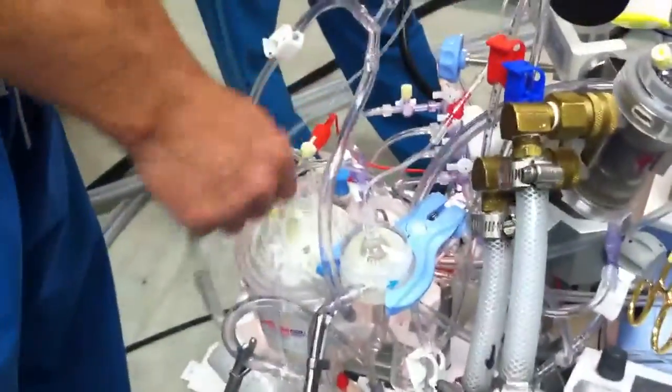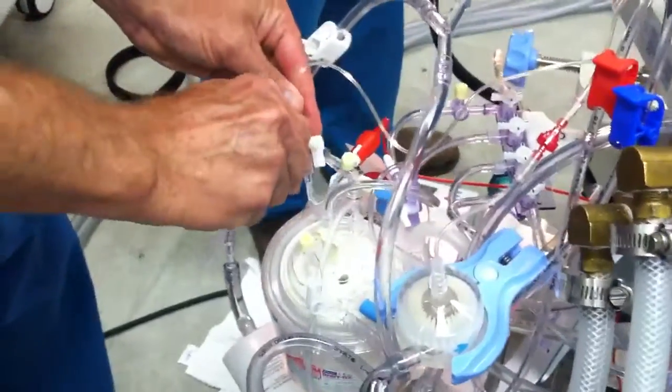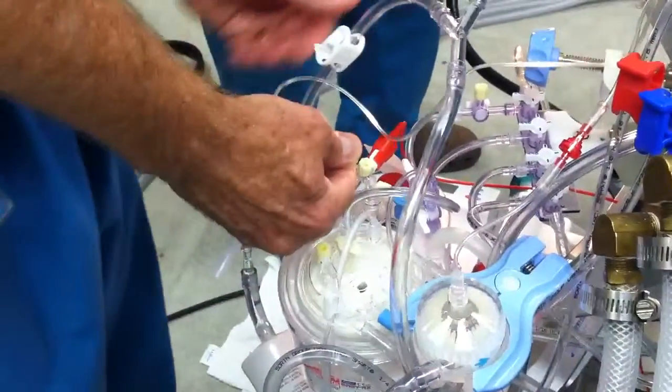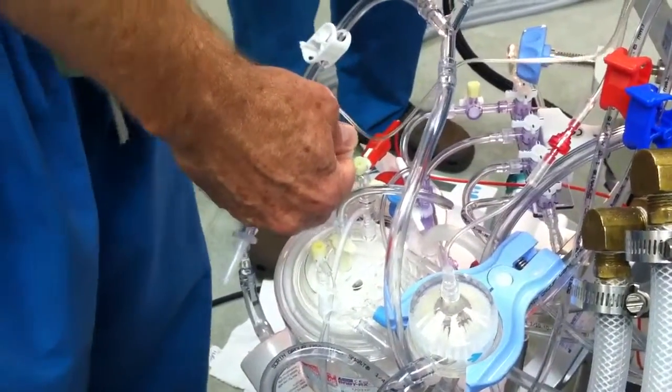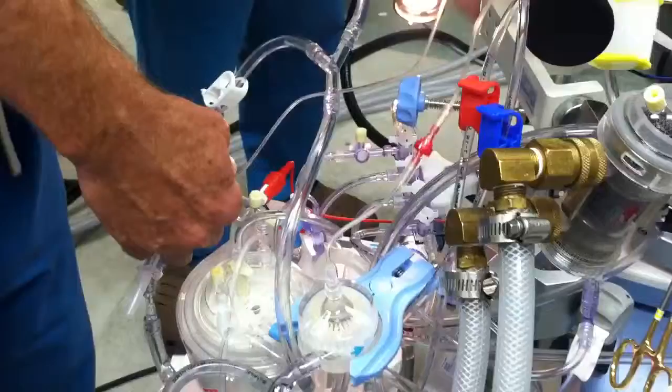The way you test if it is, down here, open this stopcock up and see if it's going through there. Is it open? Open. It wasn't full — it should be coming up the top of this. It should be going in. Out.